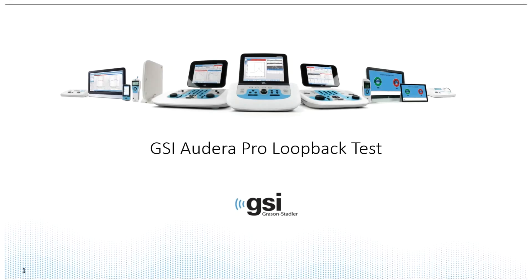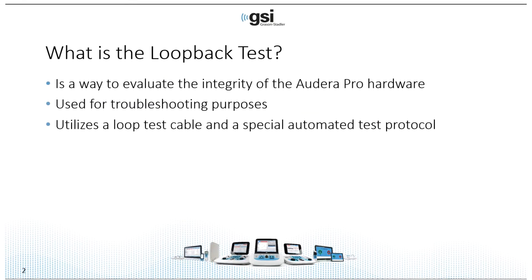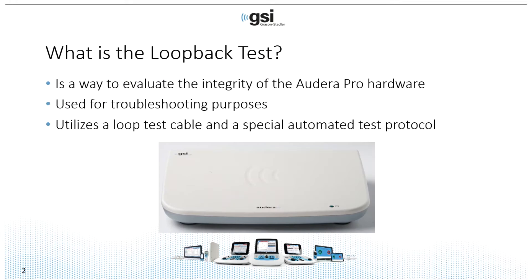Today's topic is the GSI Audera Pro Loopback Test. The Loopback Test is a way to evaluate the integrity of the Audera Pro hardware — the Audera Pro box that you see here.